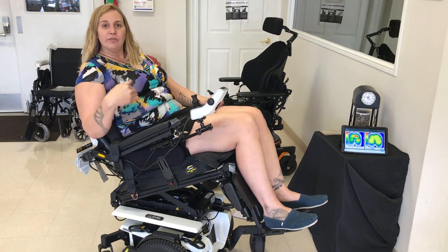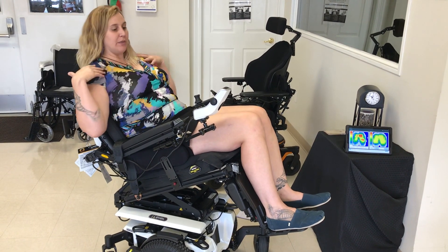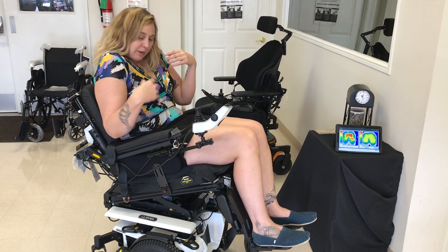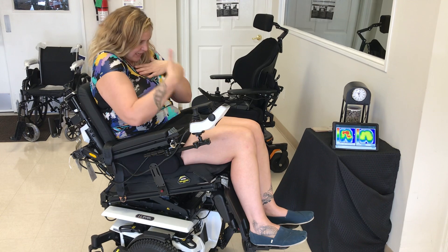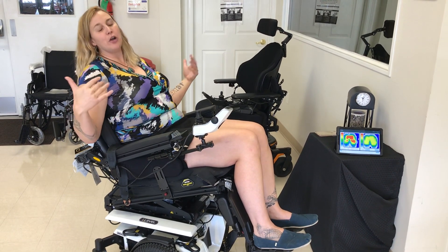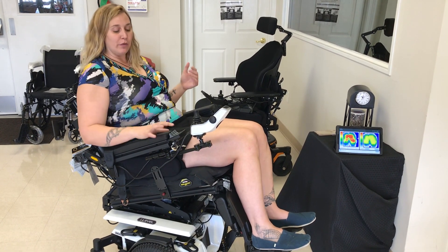Tilt is also very helpful for just increasing sitting tolerance and opening up the chest. When you're sitting upright, your body might be kind of hunched over and your eyesight might be kind of down. When you tilt back, you're using gravity to kind of open everything up and change that position, which is really helpful.